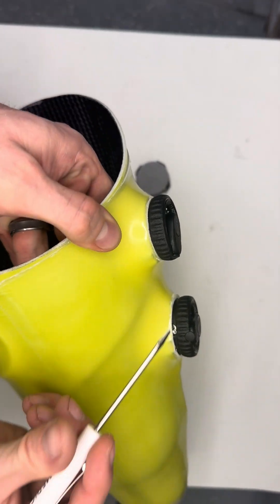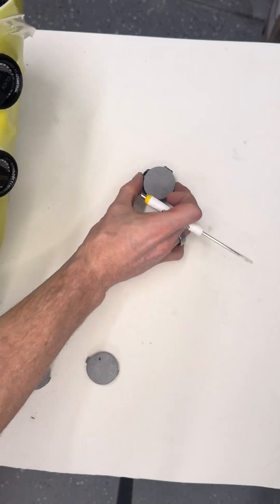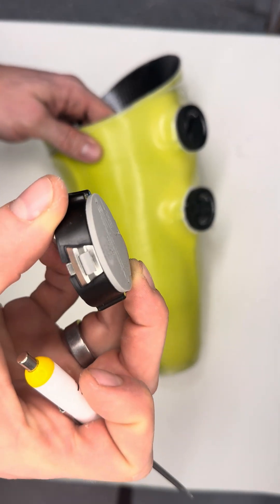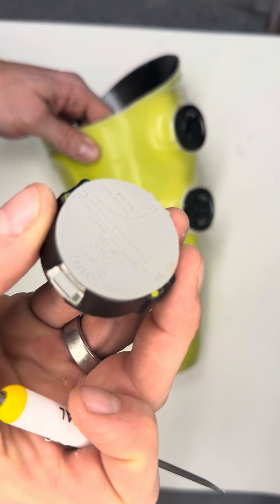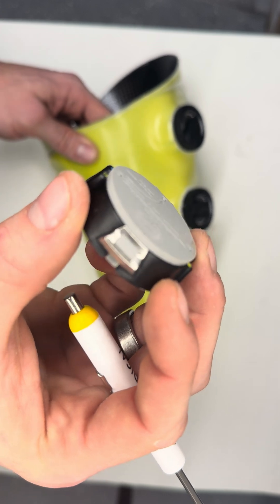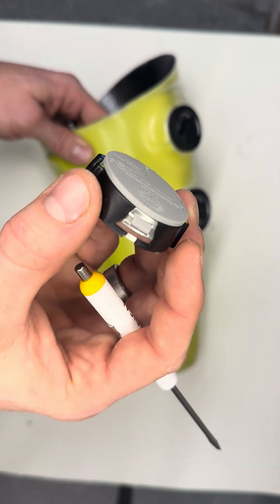So do yourself a favor: once you remove that lamination dummy, grind down all the way to flush against that metal bridge — make your life easier and give yourself a visual indication of where the retention tab is to remove that Click Reel.